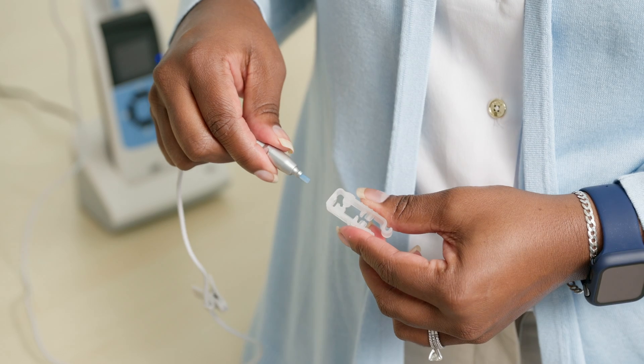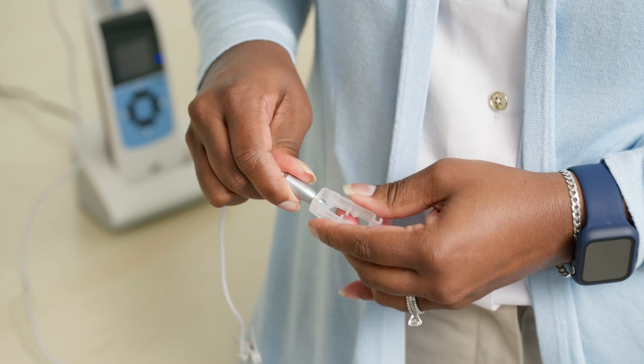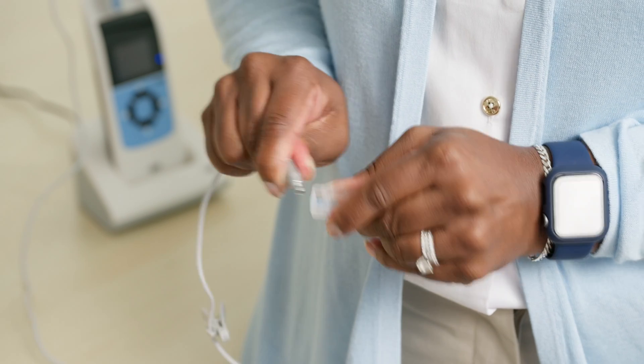To obtain accurate test results, it is important to inspect the blue probe tube daily for signs of wear or blockage. If needed, replace the tube periodically. This can be done by pulling the tube off manually or using the included probe tube removal tool. To use the tool, slip it over the blue tube until it meets the probe body and pinch the ends together to grasp the tube, then pull to remove and discard the probe tube. Insert a new probe tube into the probe body until it is fully seated — a properly inserted probe tube will snap securely into place.